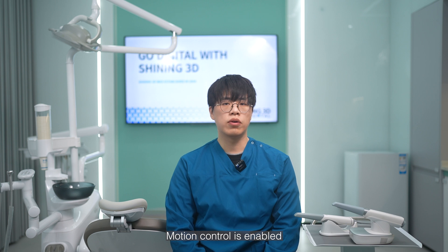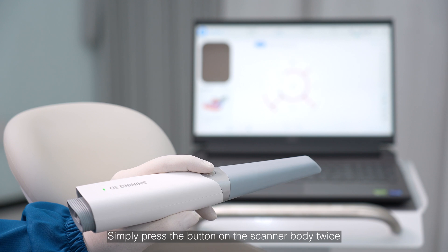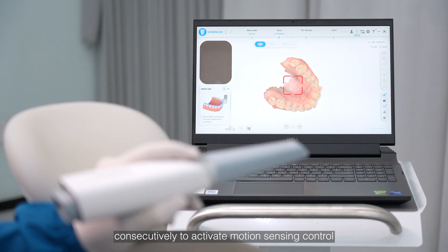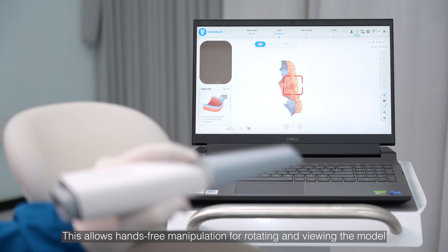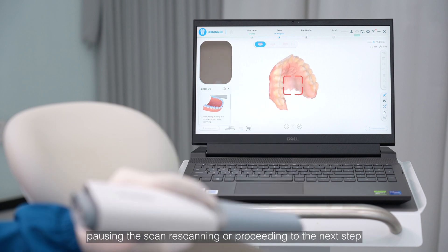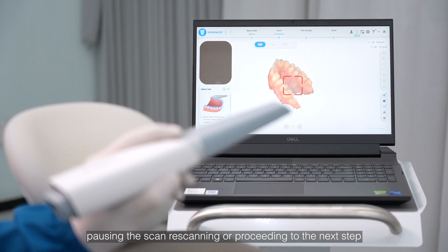Motion control is enabled during the scanning process. Simply press the button on the scanner body twice consecutively to activate the motion sensing control. This allows hands-free manipulation for rotating and viewing the model, pausing the scan, rescanning, or proceeding to the next step.